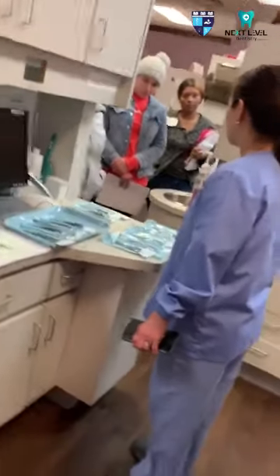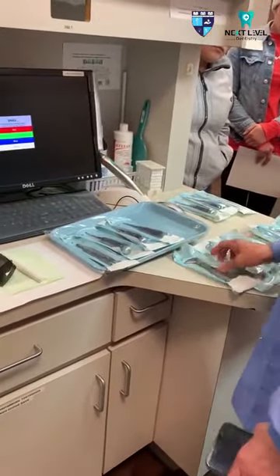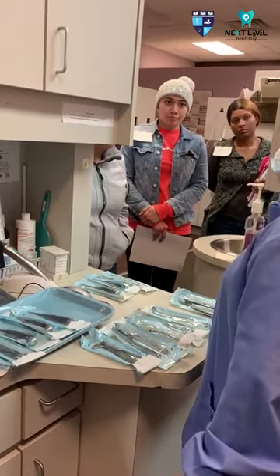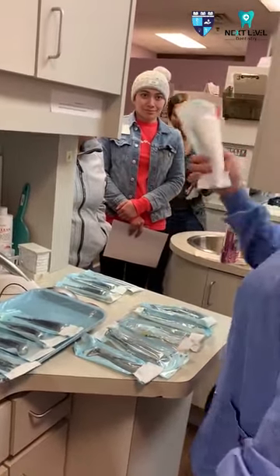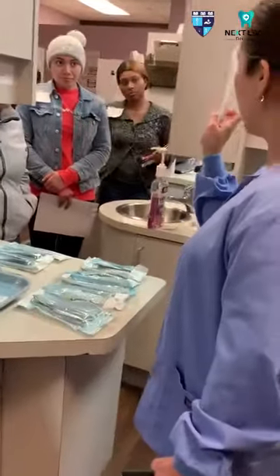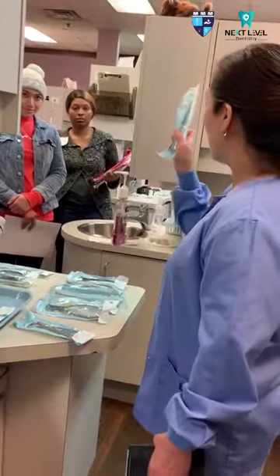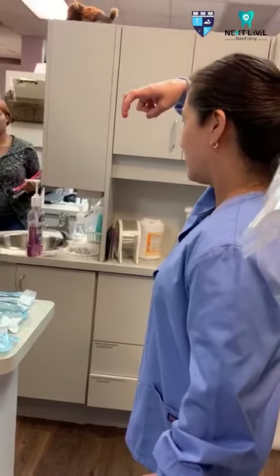If the doctor wants to extract an upper tooth, I have prepared the upper forceps here: this is for the anterior, this is for the premolar, and this is for the upper molar. The beak is towards upward. For the lower, we have the anterior — it's like perpendicular. A cowhorn lower forcep has the angulation towards down.